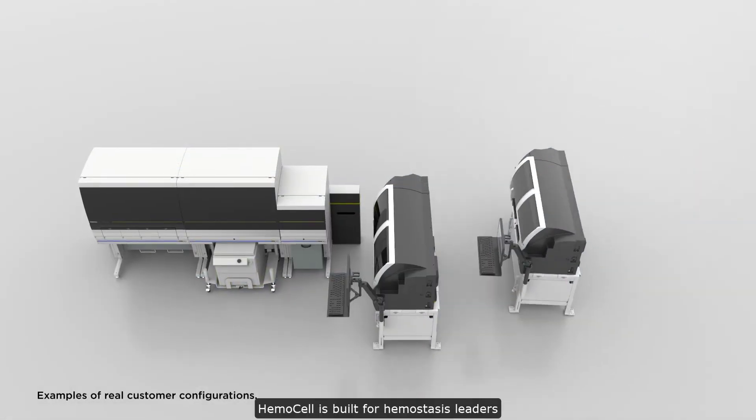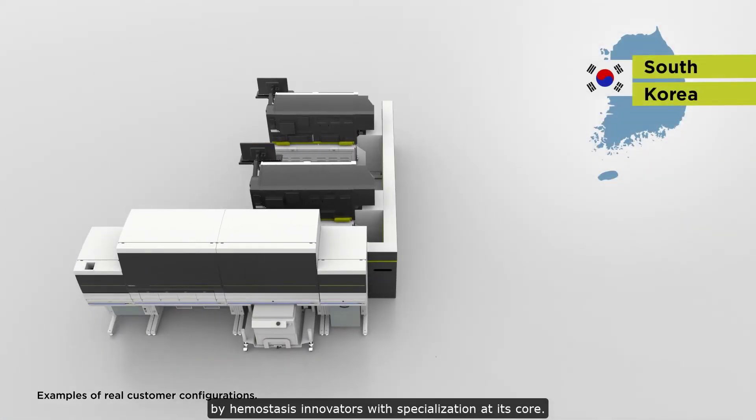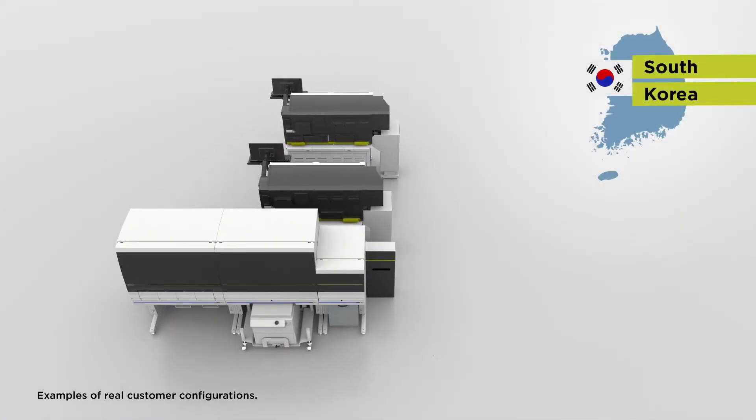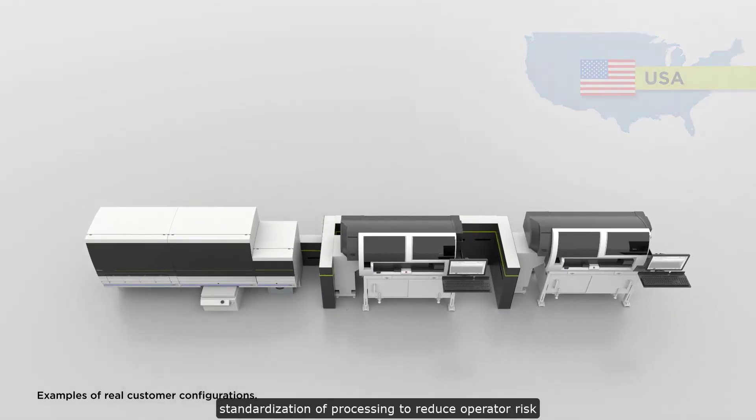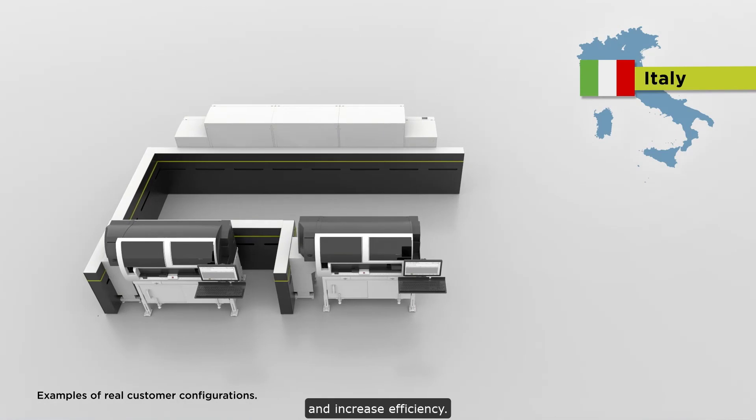HemoCell is built for hemostasis leaders by hemostasis innovators with specialization at its core. Labs around the world have prioritized standardization of processing to reduce operator risk and increase efficiency.